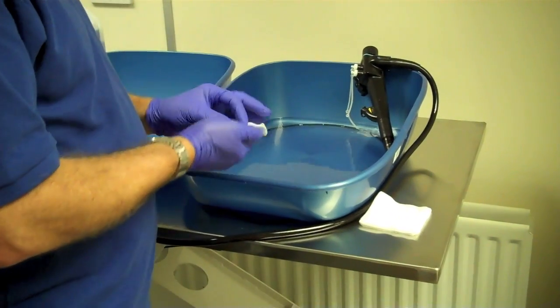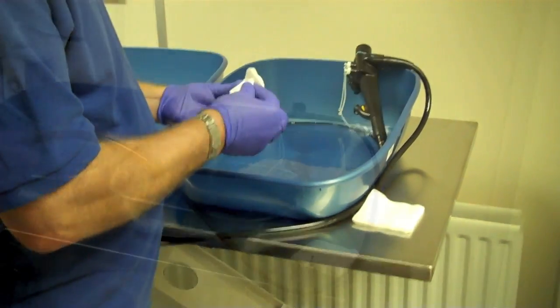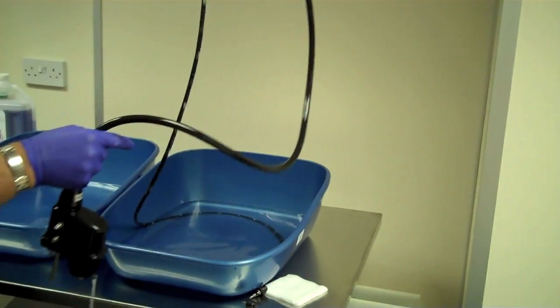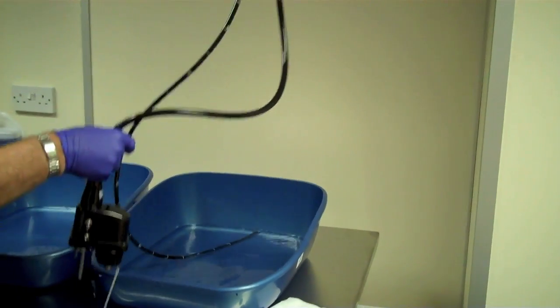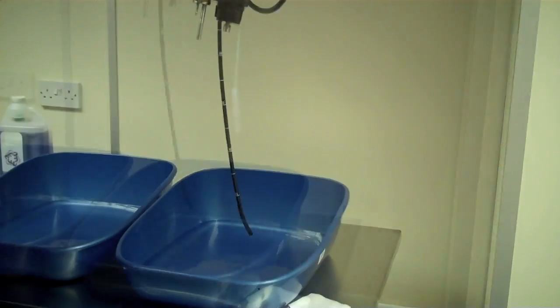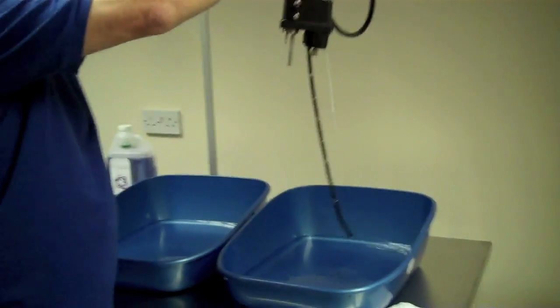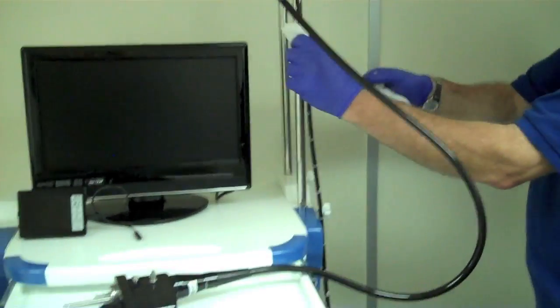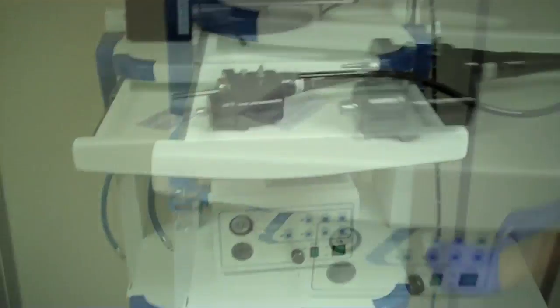Take out the clean buttons, dry them. Take out the fresh water. It's now been thoroughly rinsed and remove it back to its hanging stand. Now it's back to the stand we're just going to give the insertion tube a quick dry down externally. Just going to dry up before we put it back into the unit.